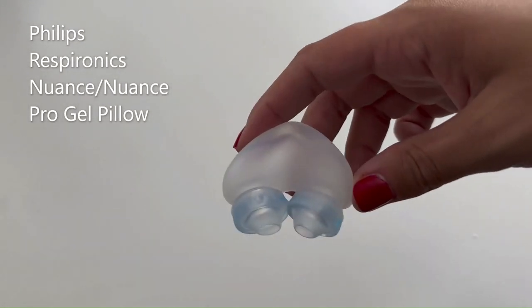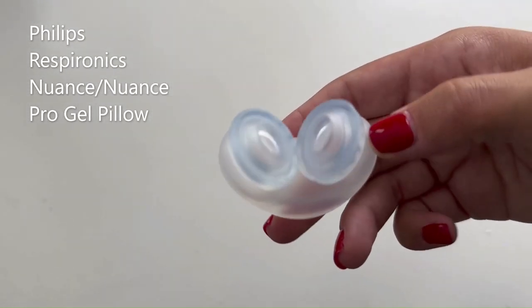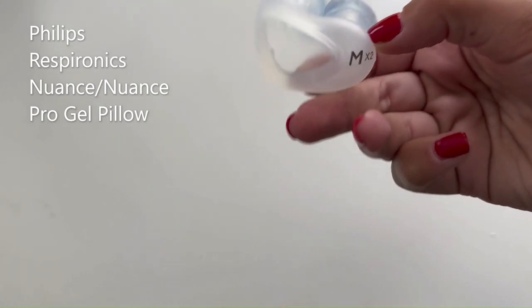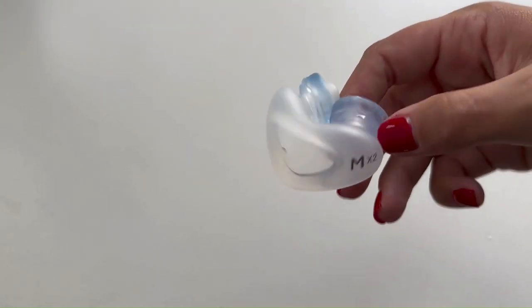Philips Respironics, the industry leader in gel cushion technology, offers the Nuance Gel Pillow for an excellent and comfortable seal.